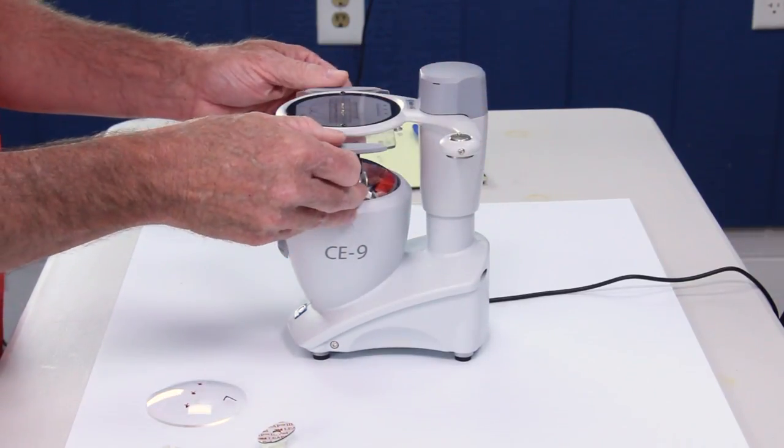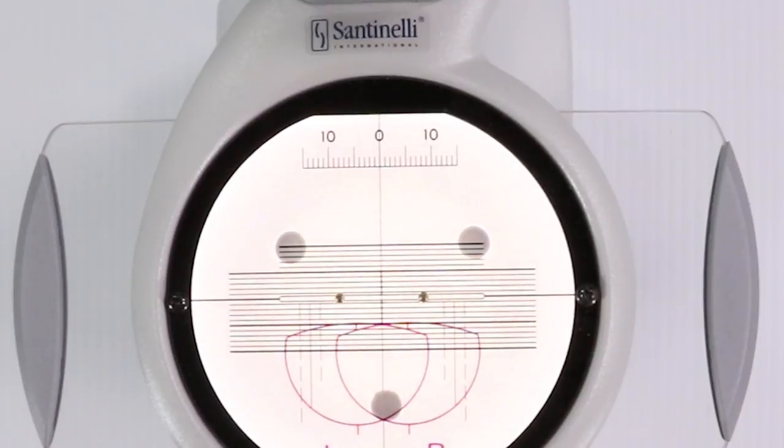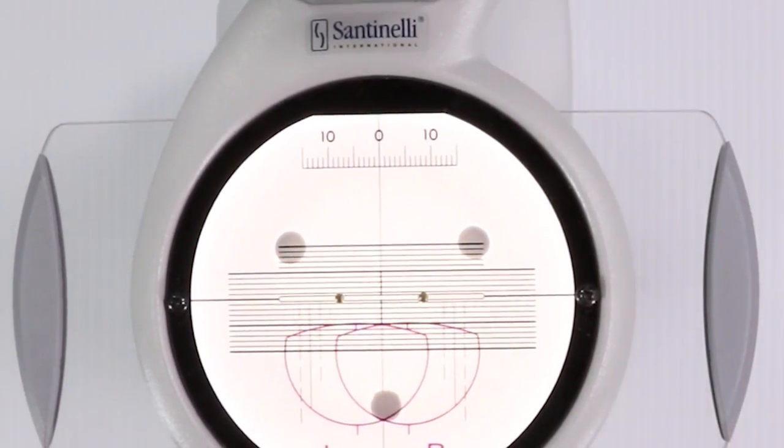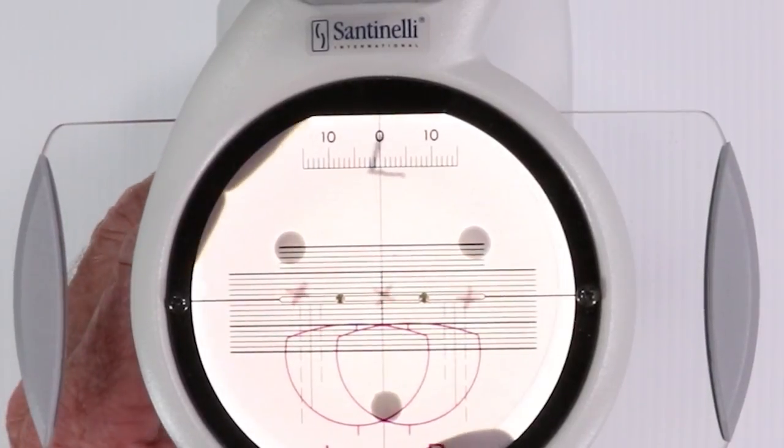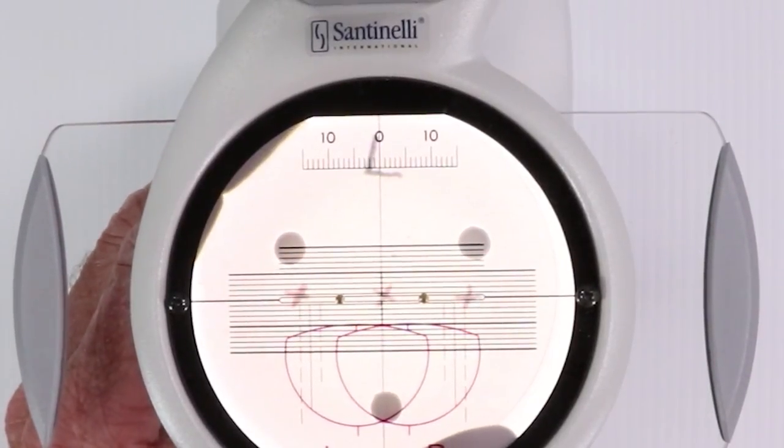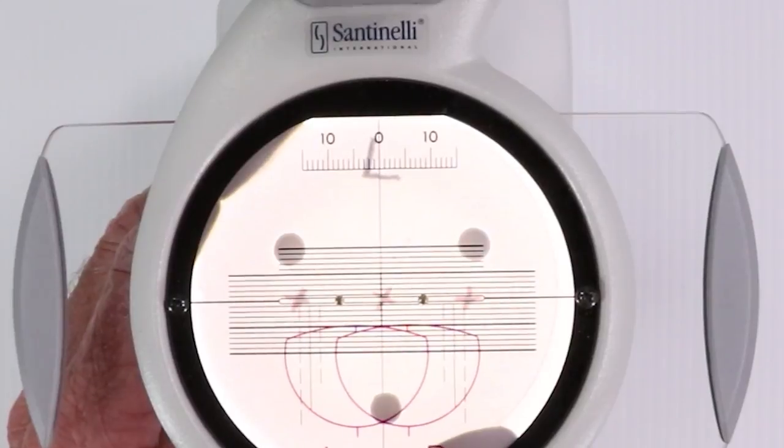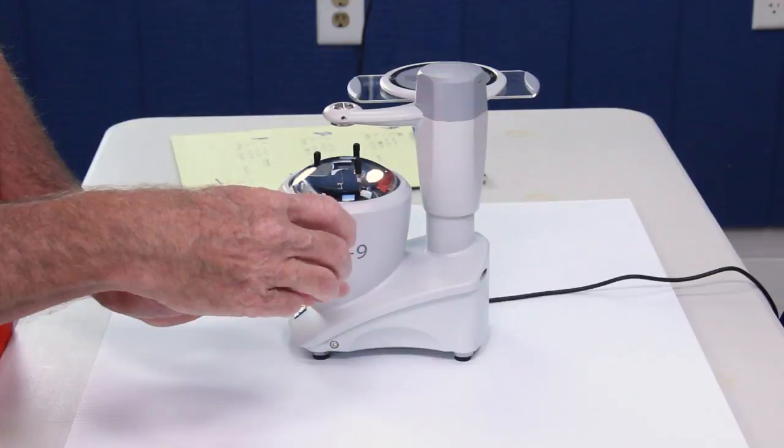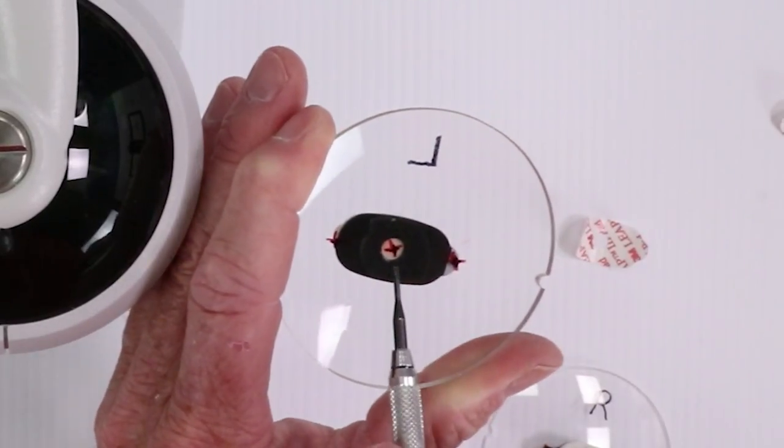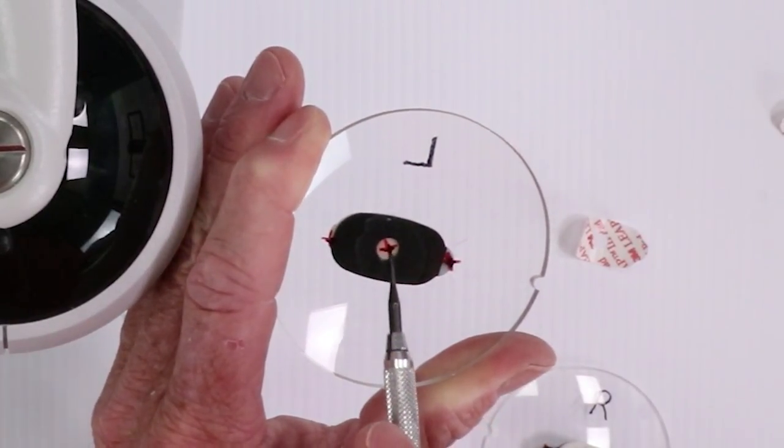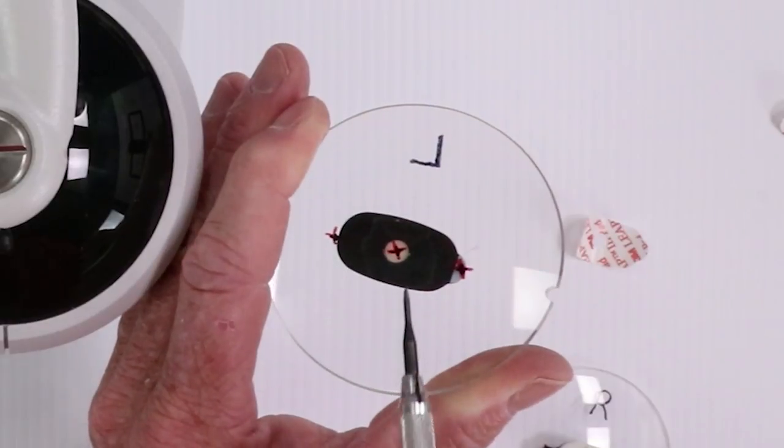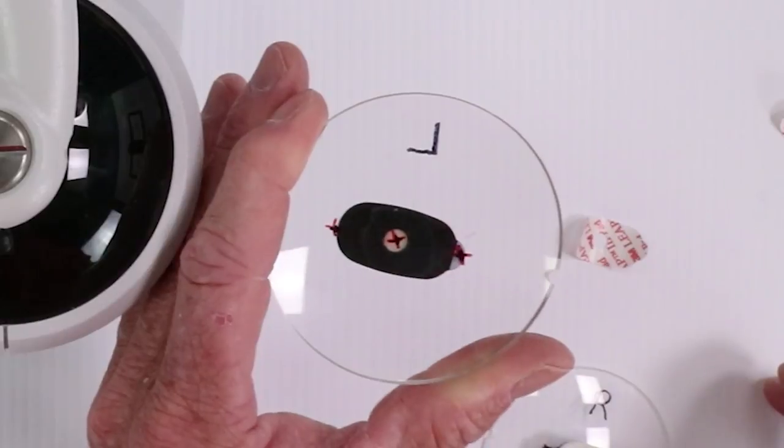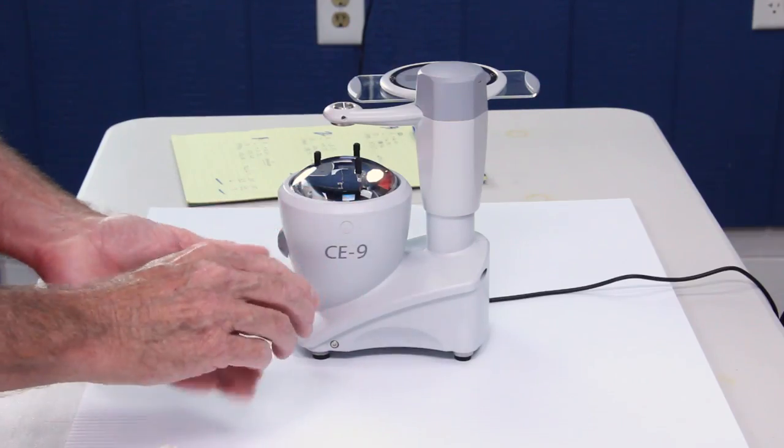Our left is a zero. I'm going to just set that on zero. Going to take my left lens and I am going to put it on zero. No decentration at all. Put my block on there. And everything should be lined up. My X, my X in the center of my dot. Perfect, no decentration. And human PD is equal to my frame PD. There we go.